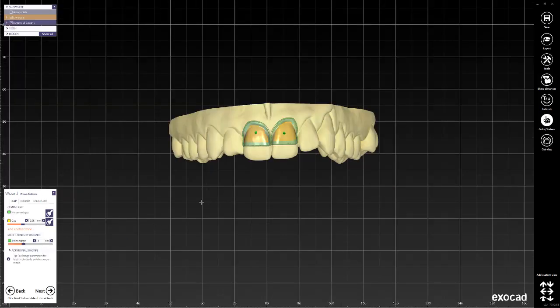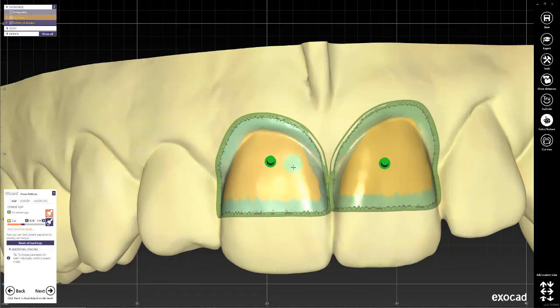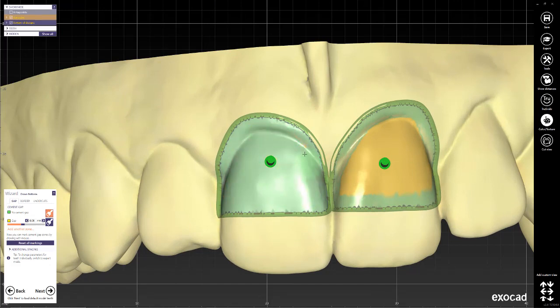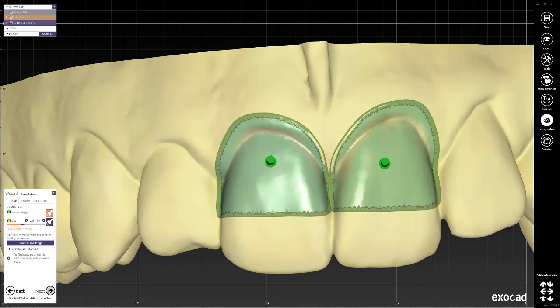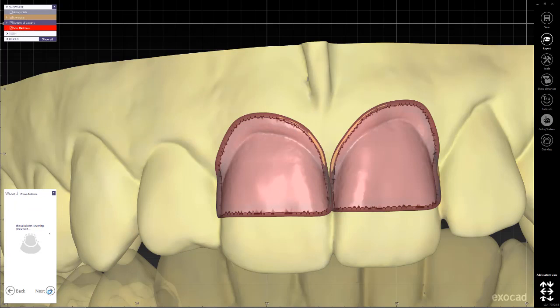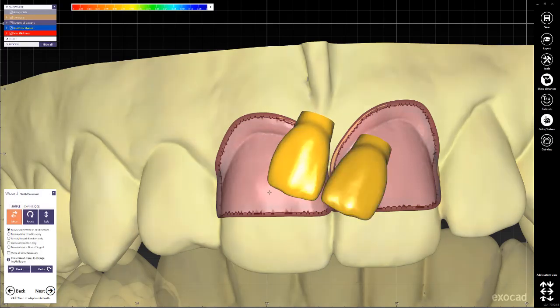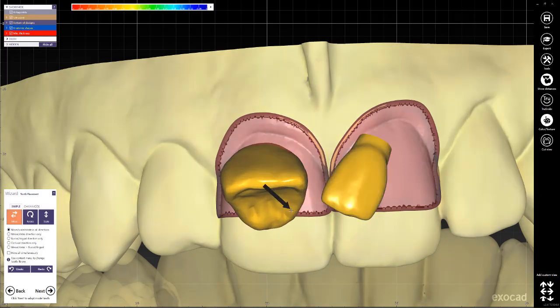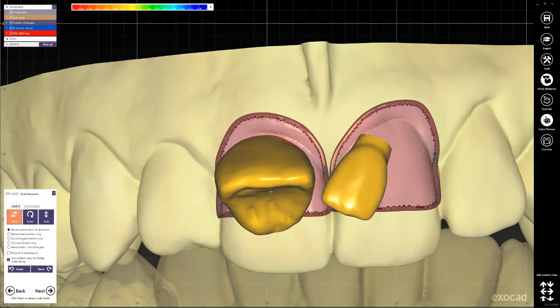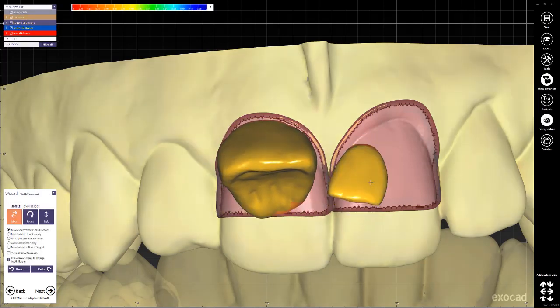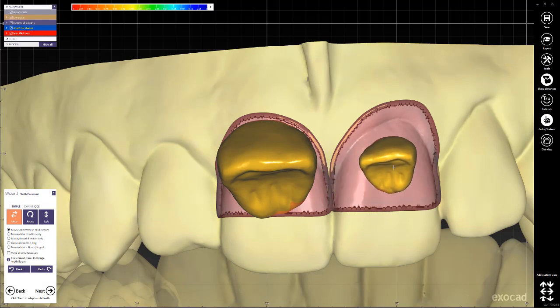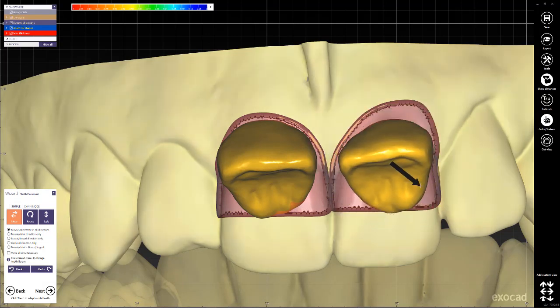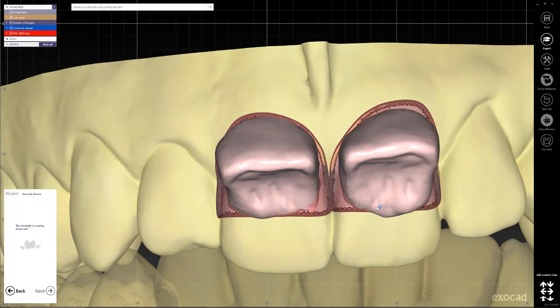Here, the only thing we could do is just paint all so that there's no cement space at all. So we'll go ahead and paint all this green and we'll move to the following step. It doesn't really matter what we do with these teeth, so we're just going to create something like this that would be good enough.